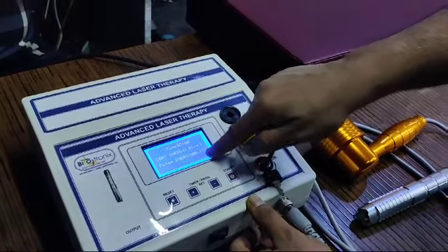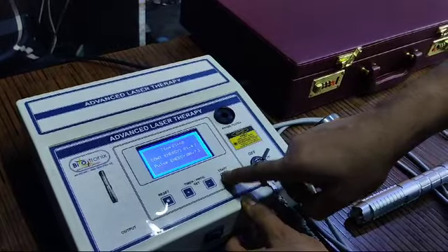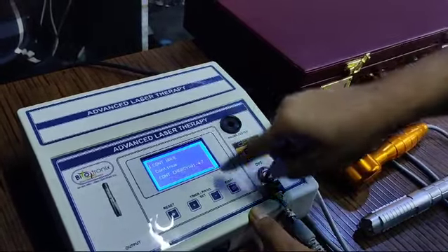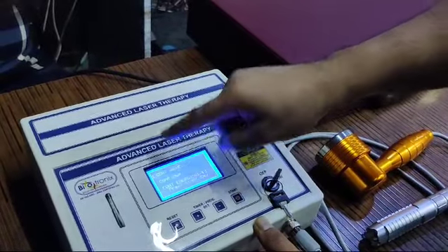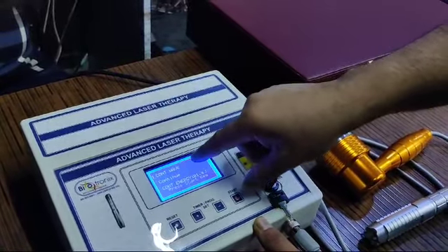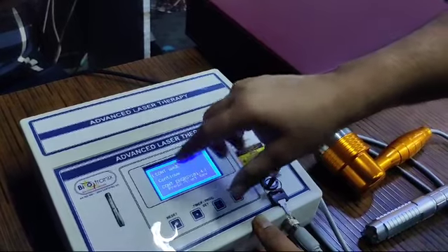It's asking to again press the start key. Press the start key again. This is the continuous program, the first program. If you want to select the program with the name of disease, there are 45 pre-programs in the machine.